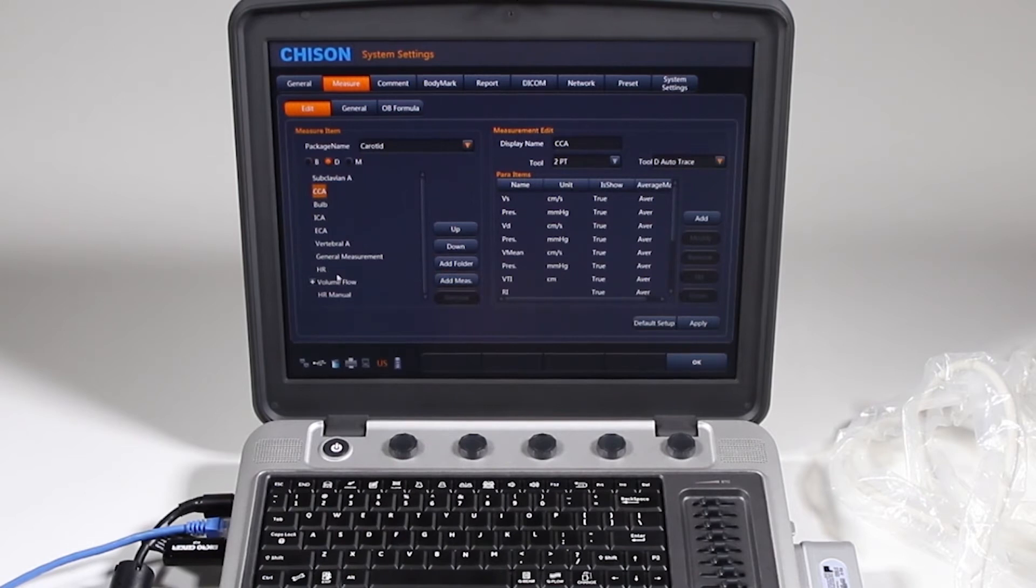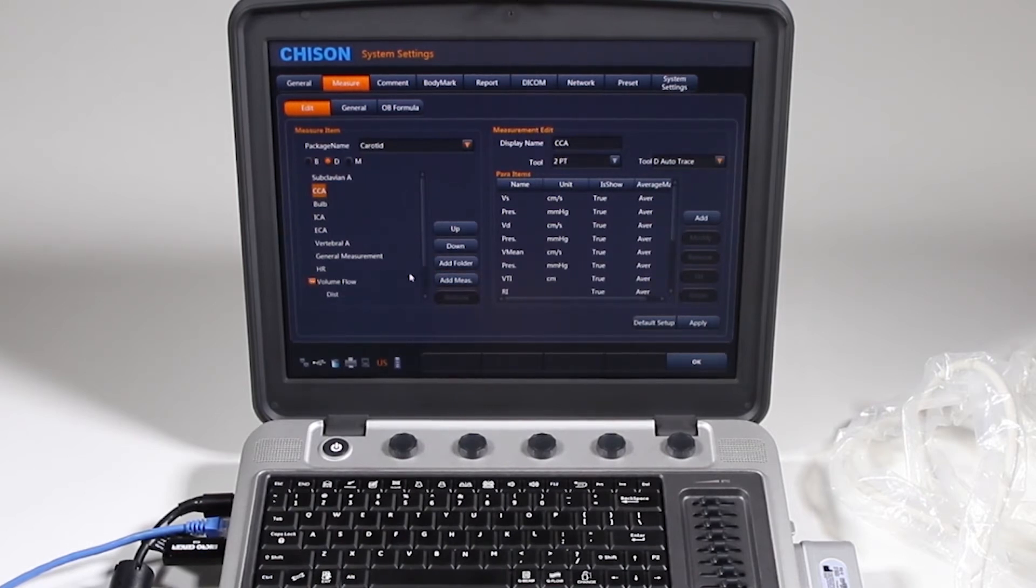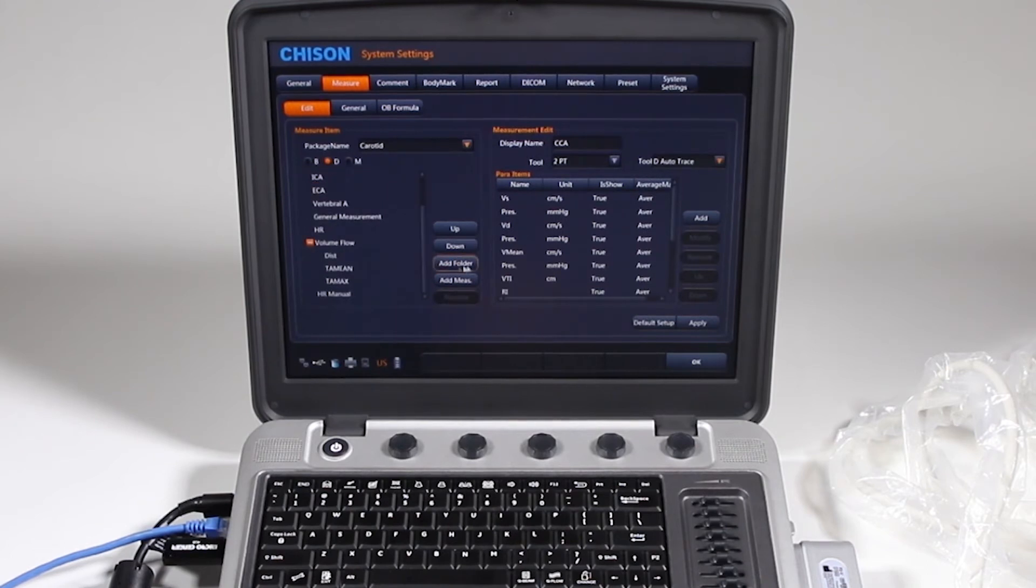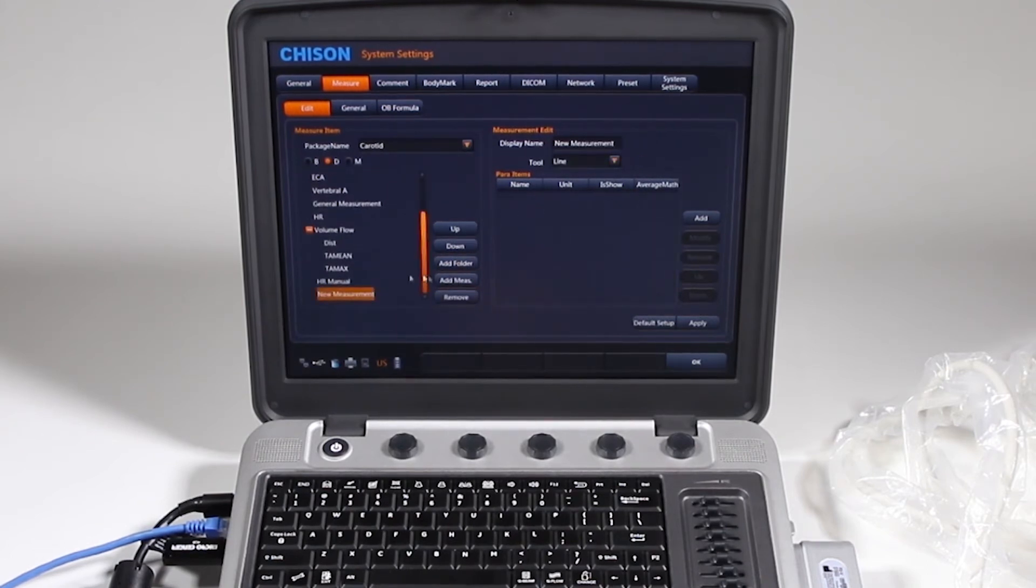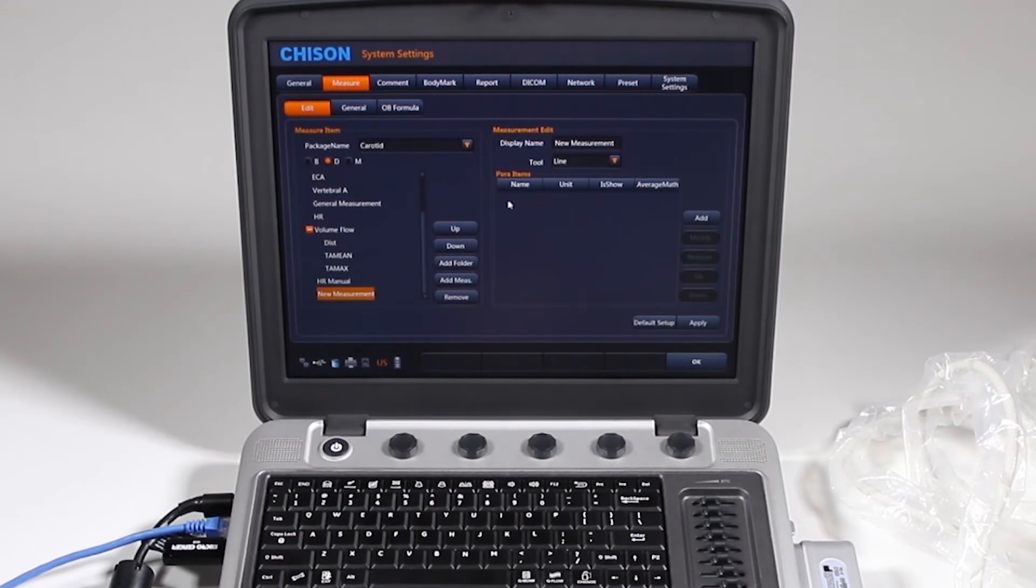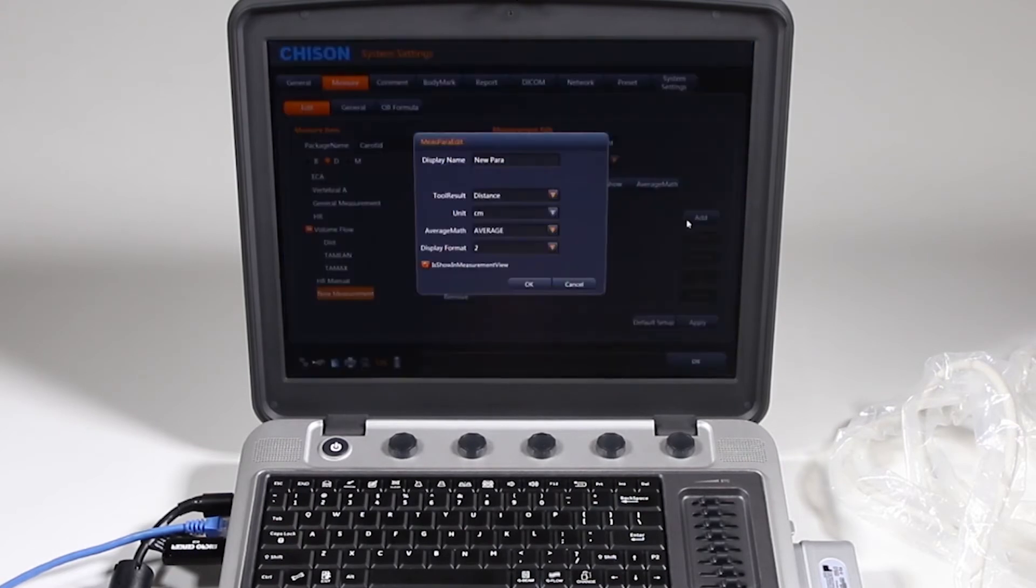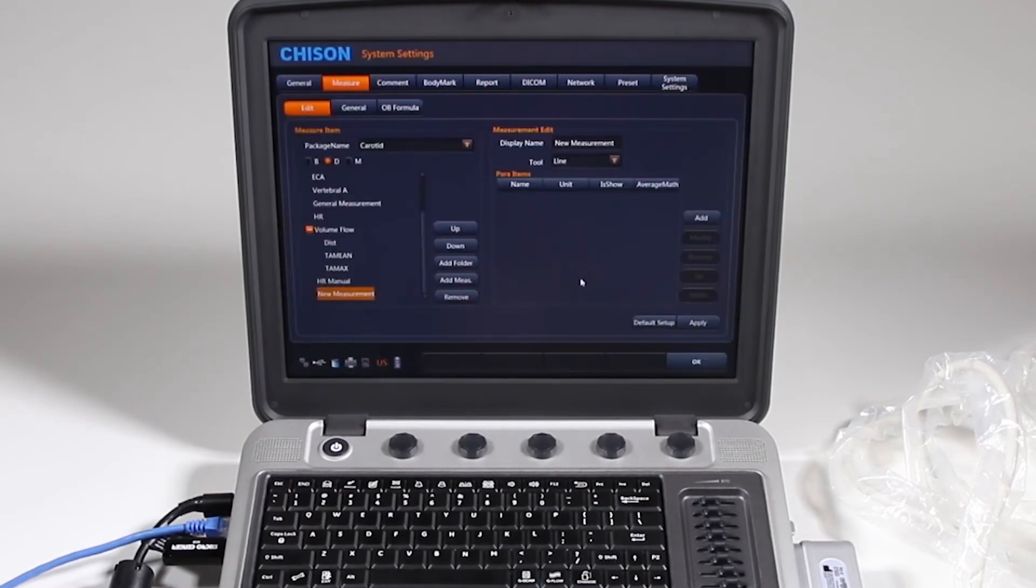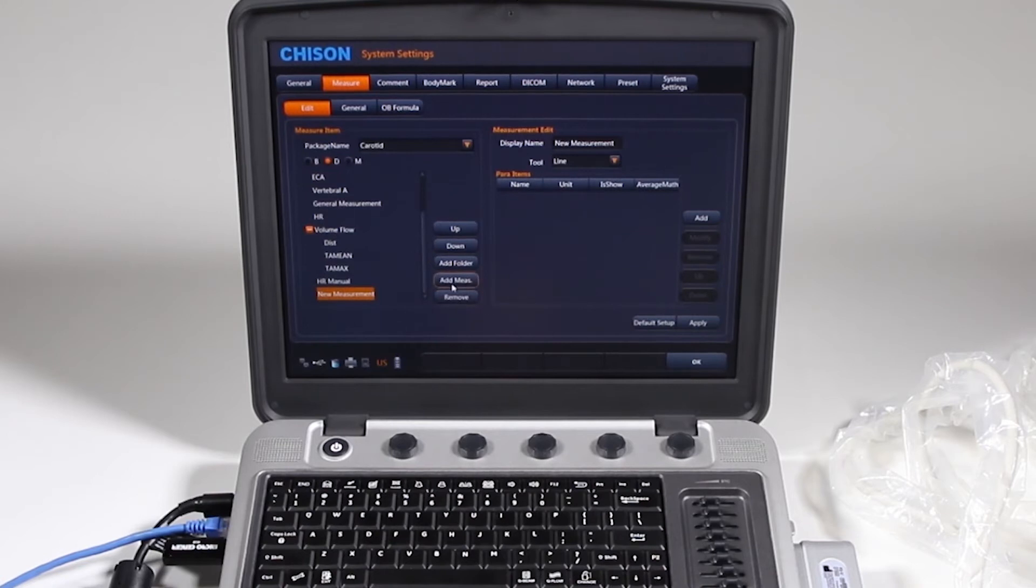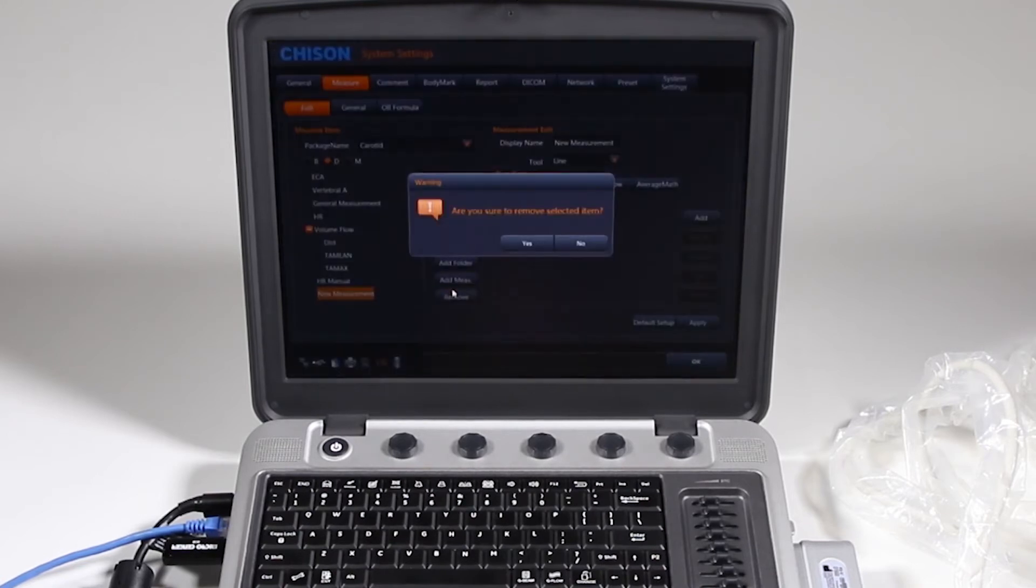Your own folder will give you this little plus button where you'll have multiple measurements below it. But if you just want to add a measurement there, you'll click add, say new measurement, and you can give it a name here, and go down and follow these instructions for whatever it is that you want to add to that custom measurement, and it will appear. Here I'm going to go ahead and remove that measurement.